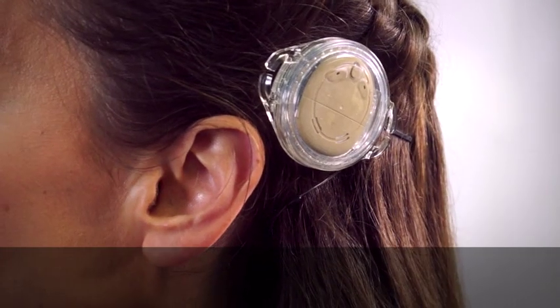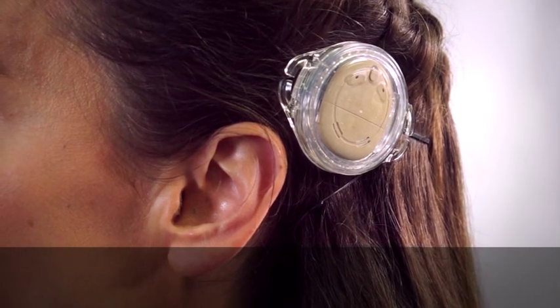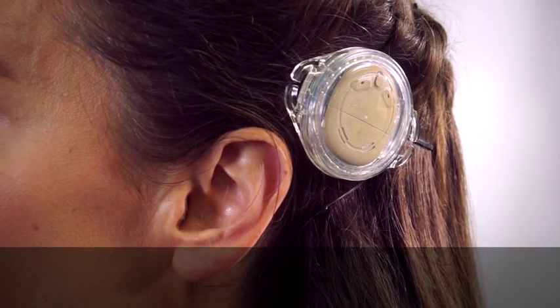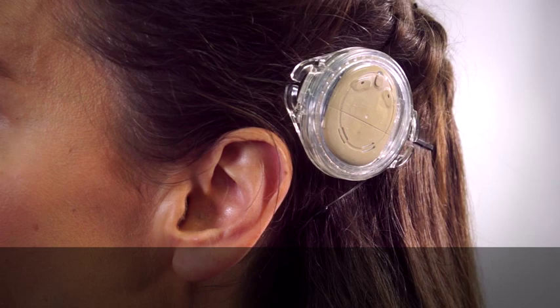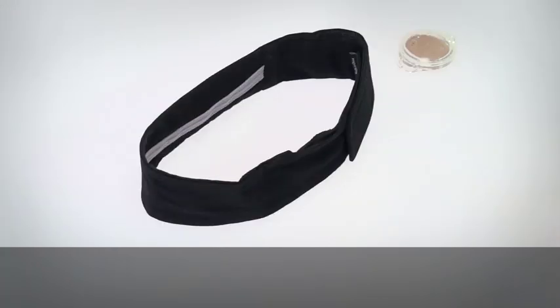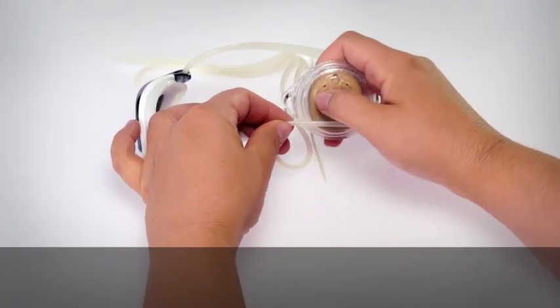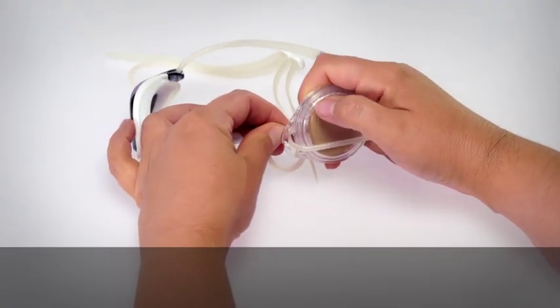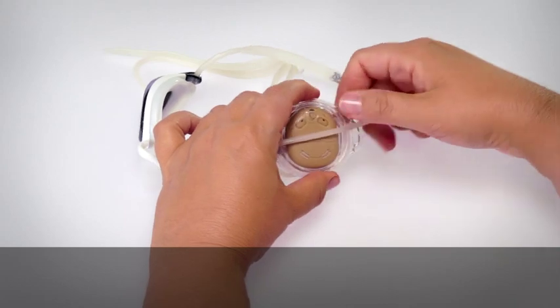Place the Aqua Plus on your implant as normal, making sure that the button and light are facing up. Use a retention aid such as goggles or the cochlear headband to keep Aqua Plus on your implant. The goggles strap goes over your Kanso to keep it firmly on your head.